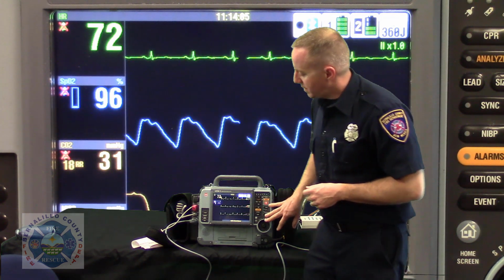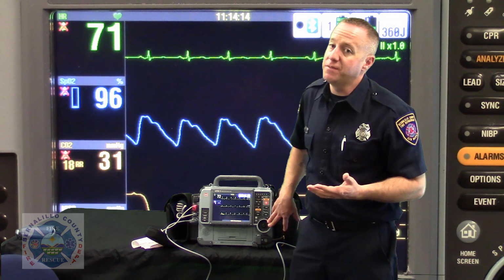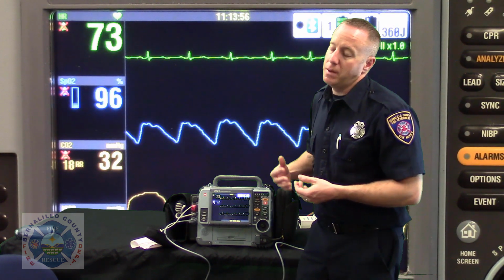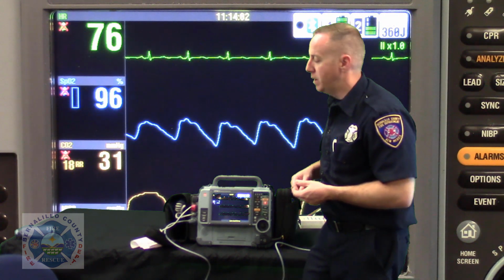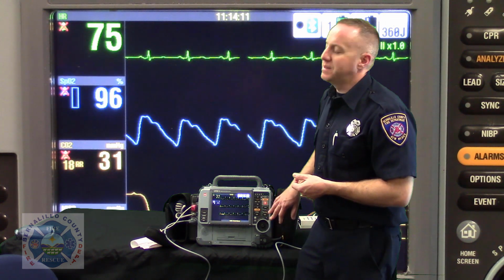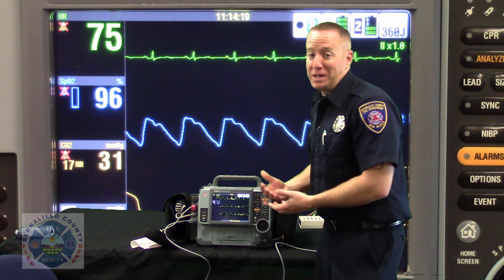So when we talk about entering demographics into the monitor, it's more than just a preference of the EMS division or a preference of Bernalillo County Fire. It is literally a step that's been a long time coming so that we can really make a very, very positive impact on somebody's outcome. If your heart's going without adequate blood flow because of acute coronary syndrome, and it's a matter of me putting in a date of birth or a name spelled correctly, that's going to save 10, 15, 20 minutes of muscle, you can see that this isn't necessarily a small portion of this interaction. It actually turns out to be a very big portion of the interaction. So I hope that I've articulated that well enough to you.